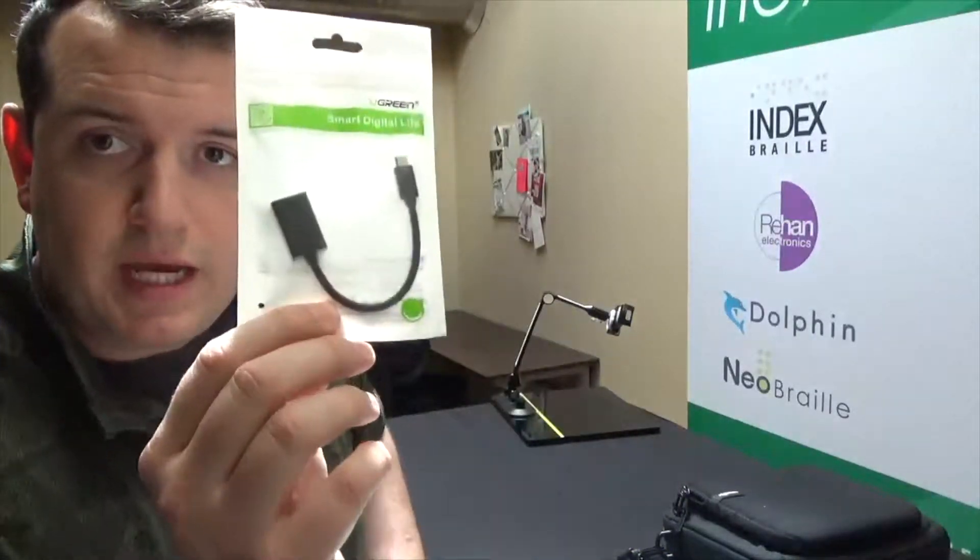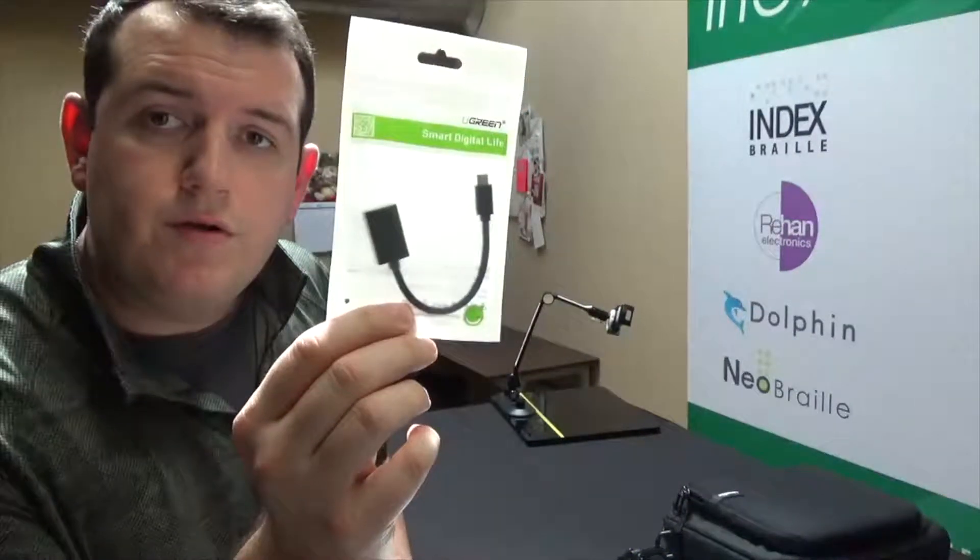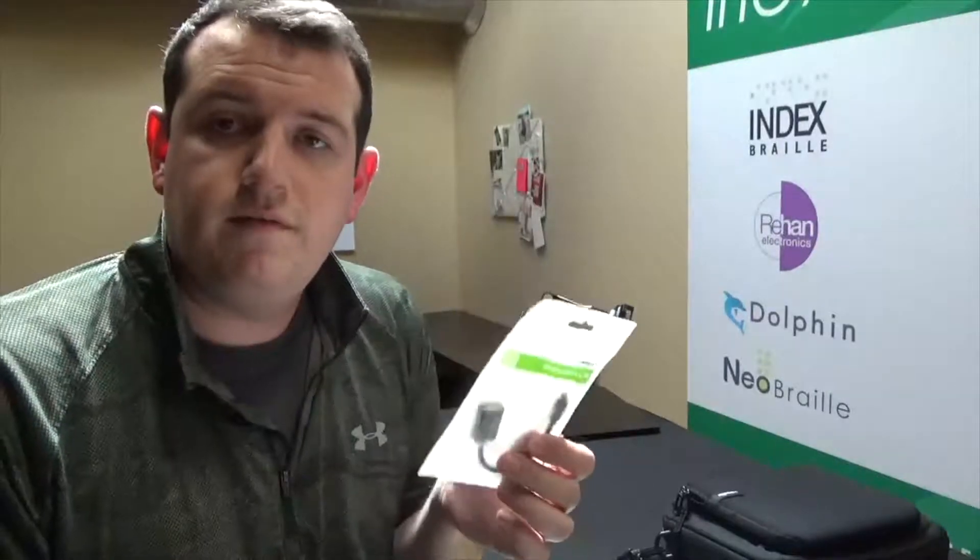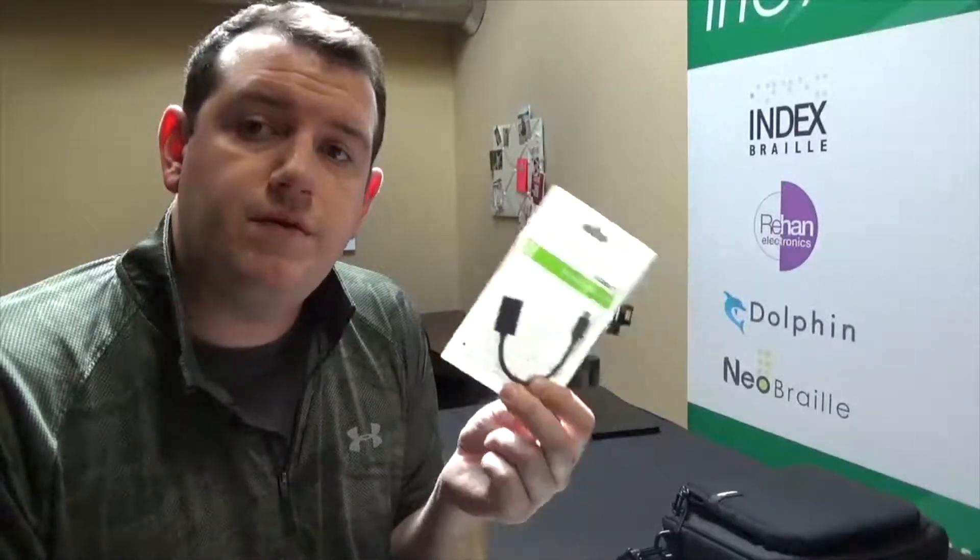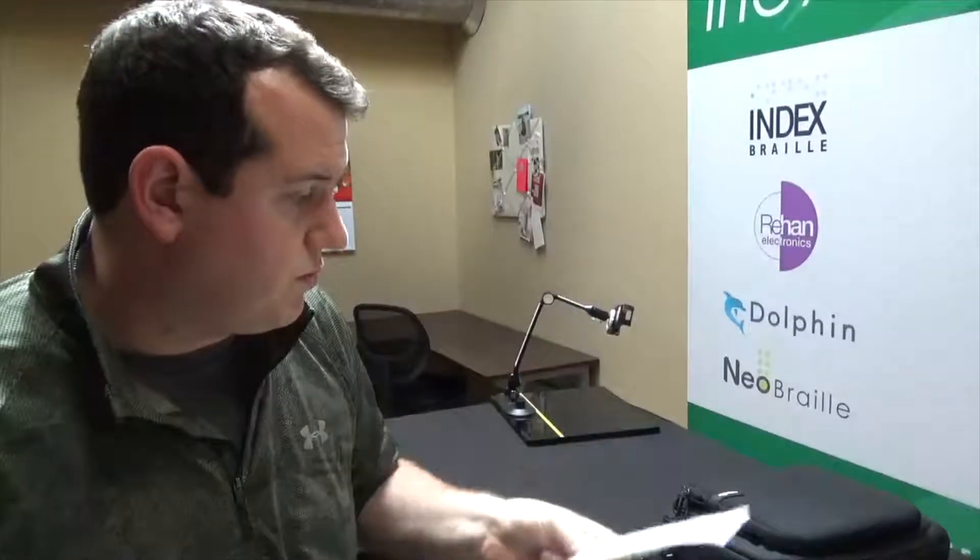We also have this, which is just a handy little dongle that you can plug into your device and plug in a USB flash drive. That allows you to load books from a flash drive onto your Synapptic device and use the book reader. So that is really cool too.